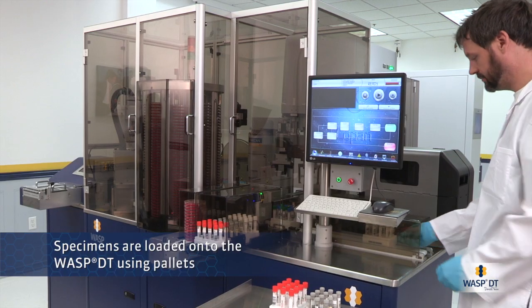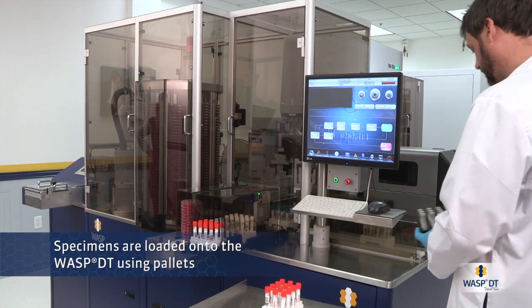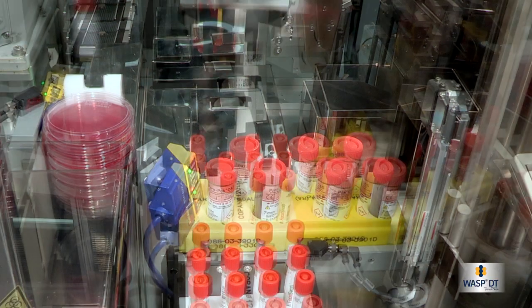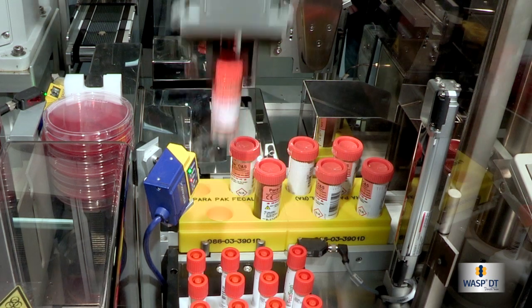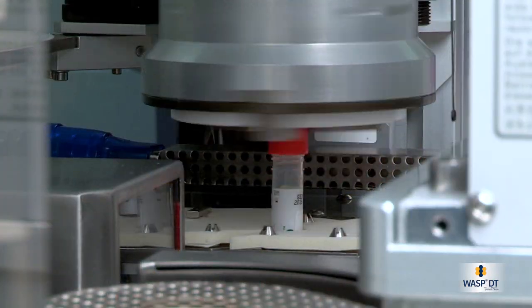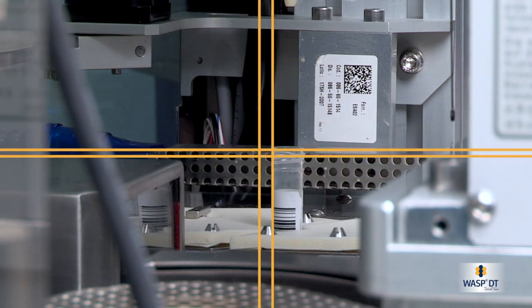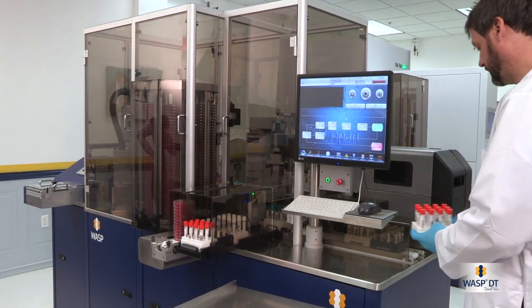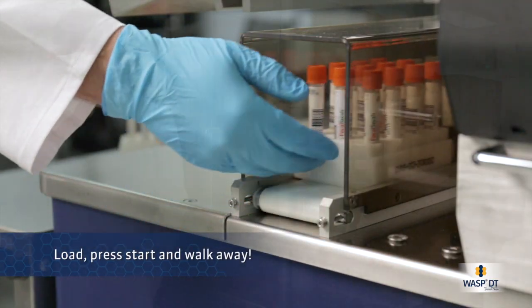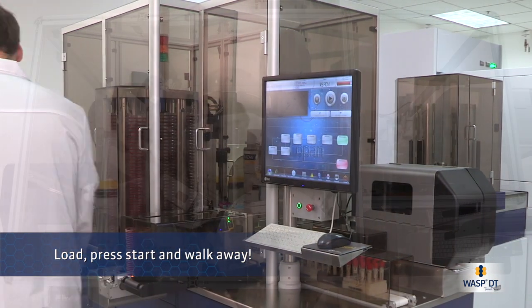Specimens are loaded onto WASP using pallets. The universal grippers and decappers automatically resize for the type of container. Simply load, press start, and walk away.